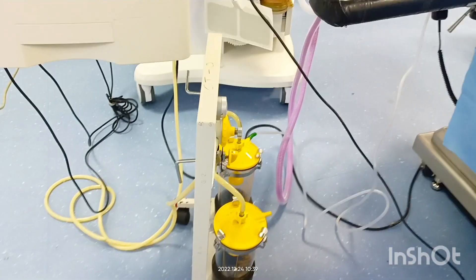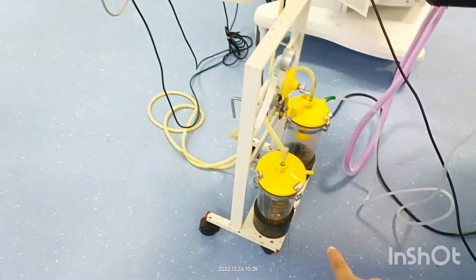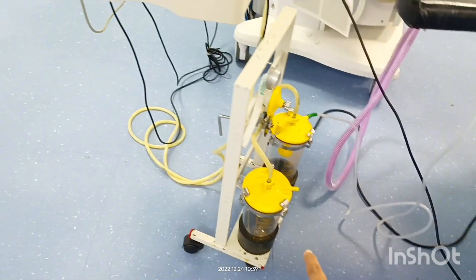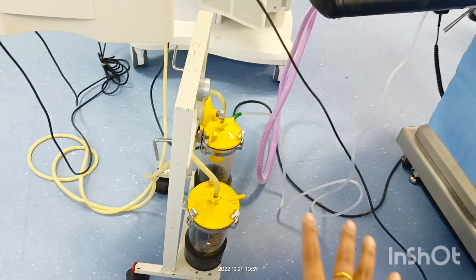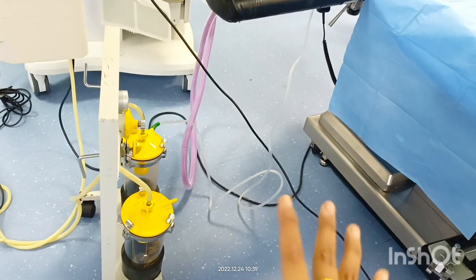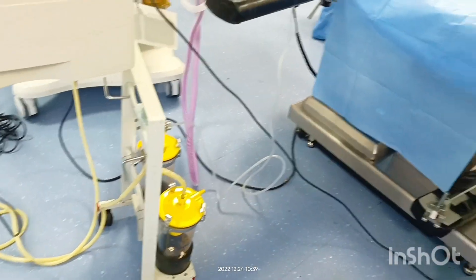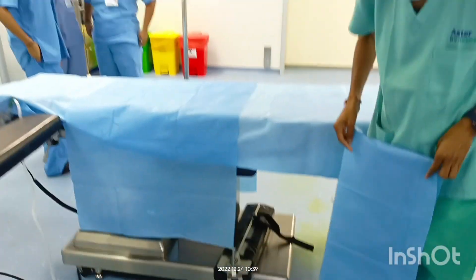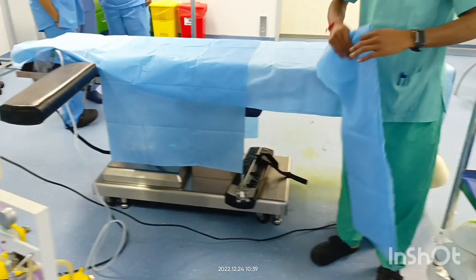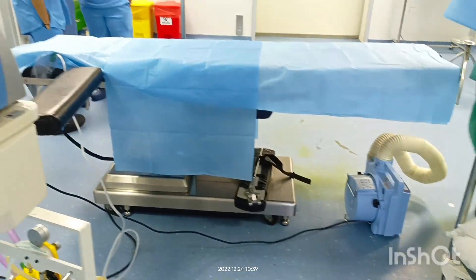This is the suction machine. We use it specially during or after intubation, and for extubation — to clear secretions from the patient's mouth. And this is the bed where the surgery happens.